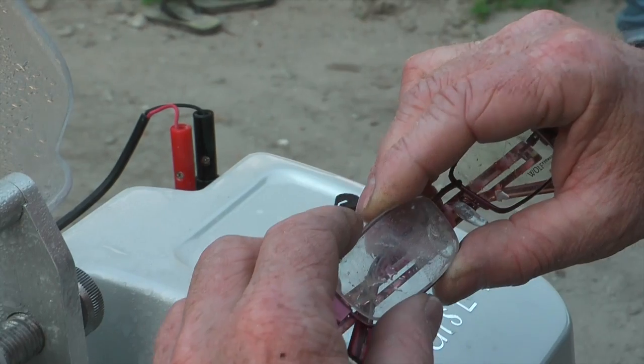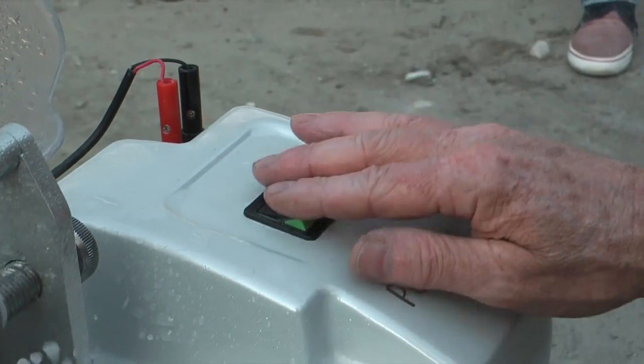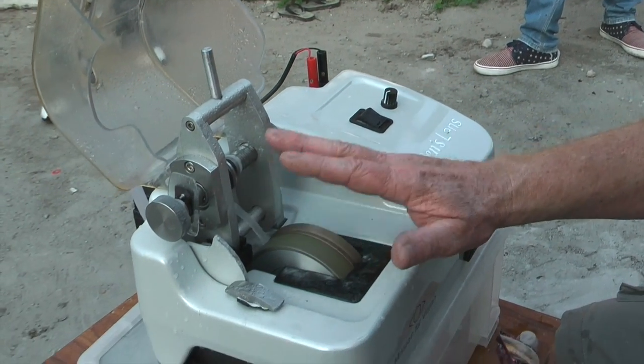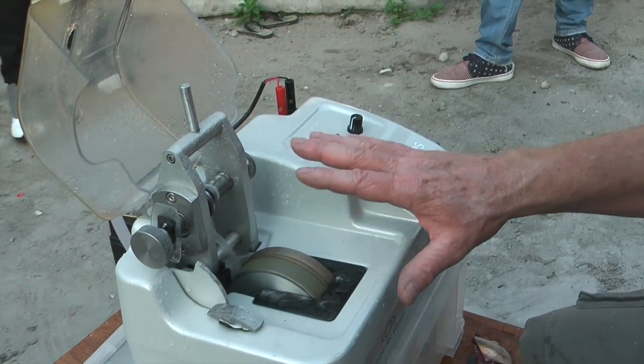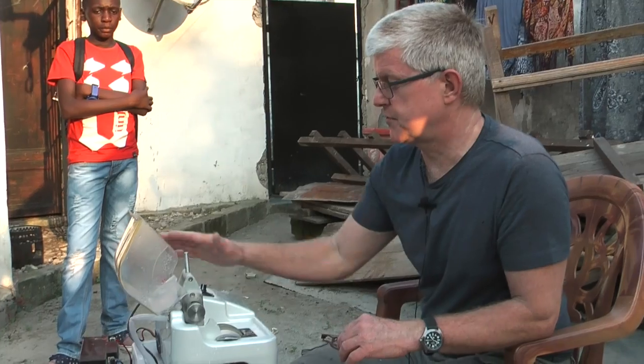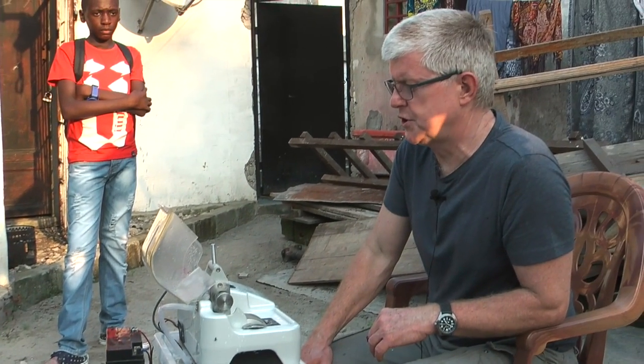As you can see, the lens is almost ready to go in. This element does take a little bit of practice. But the idea is that we will be training up maybe four or five people in a laboratory on these machines, so we'll have a few of them so that they can manage a bit more volume. The beauty of this machine is that it will always work no matter what is happening to the power supplies on the main grid. We can use this because it runs off DC current, and that means we should always have it as a backup no matter what else happens.